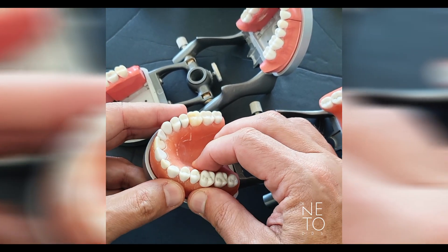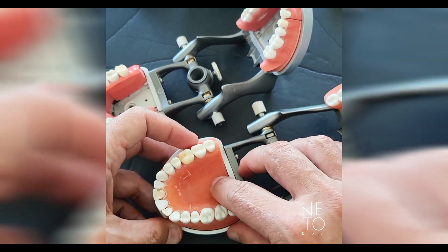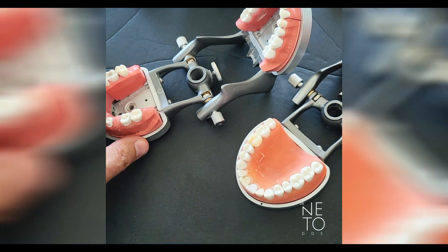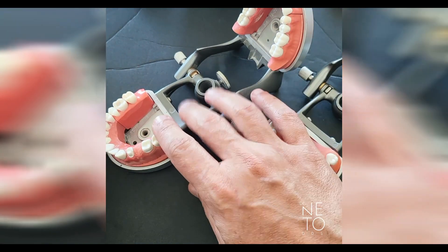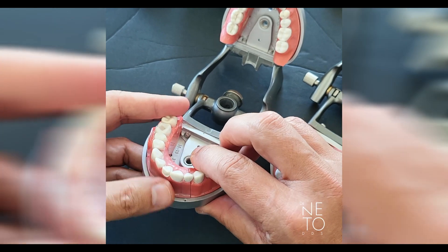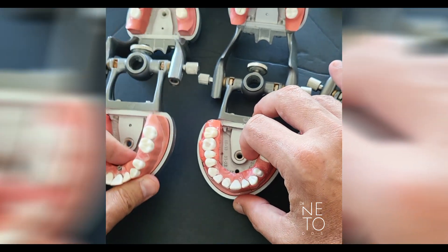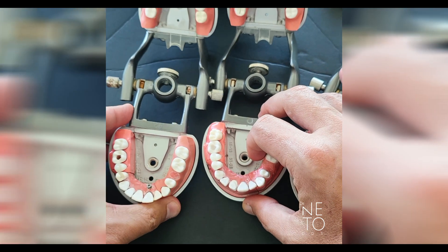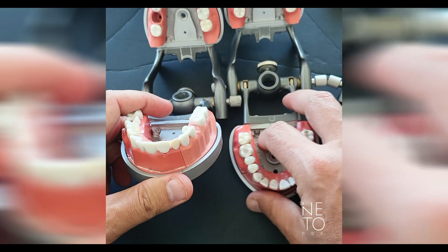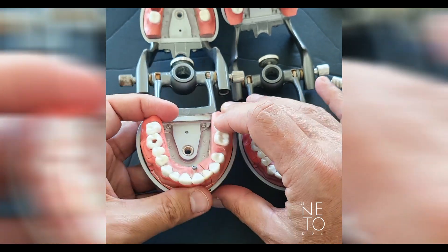So the difference between these two typodonts: the M300 comes in just one section and the gum is soft. The other typodont — the M200 — is the one you use for prosthodontics: the bridge, number nine, and also number eight endo. This one is not prepared for number eight endo; it comes as is.